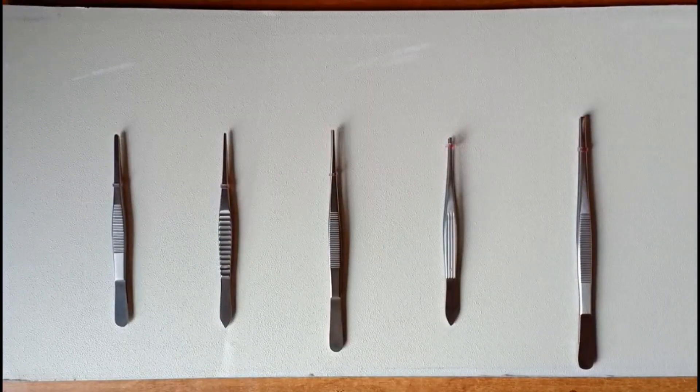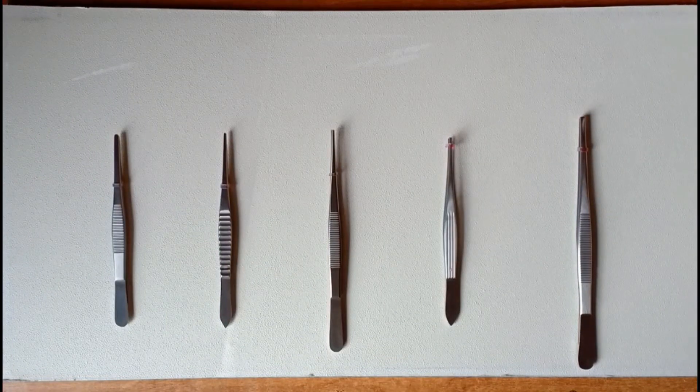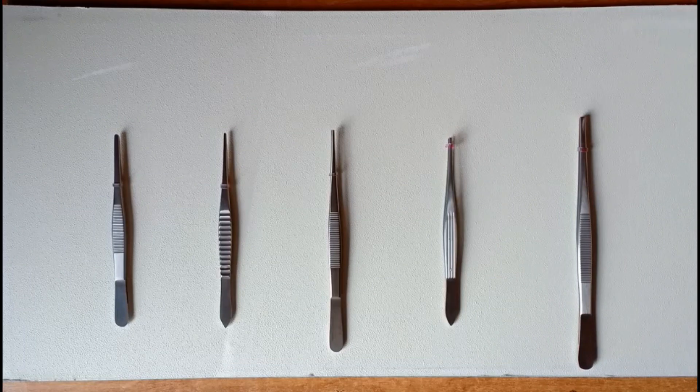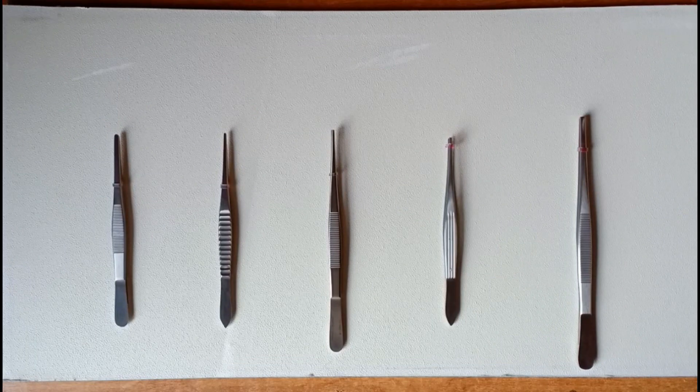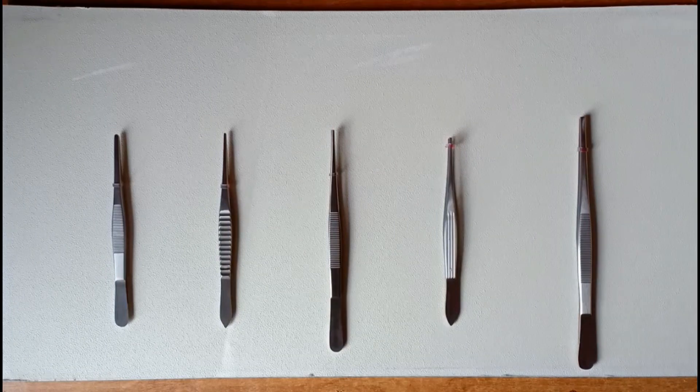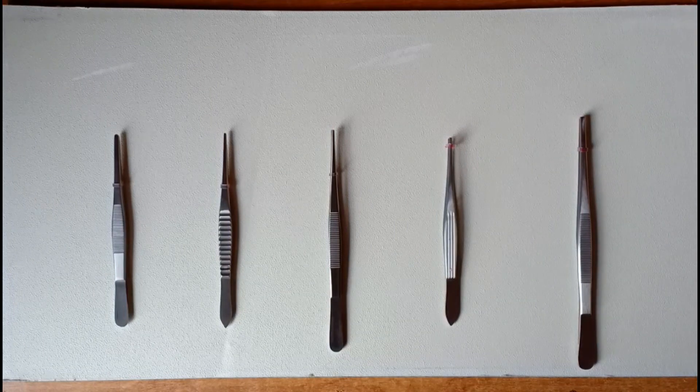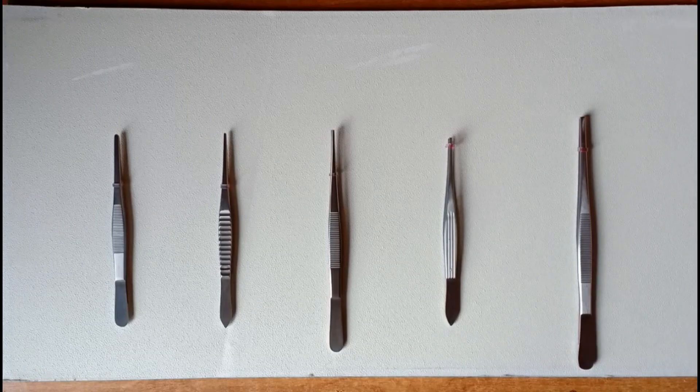Hello and Asalaamu Alaykum, we are here with a review video for forceps made by Swantia Medicals. There are various types of forceps made by Swantia Medicals that you can buy and search for on their website.